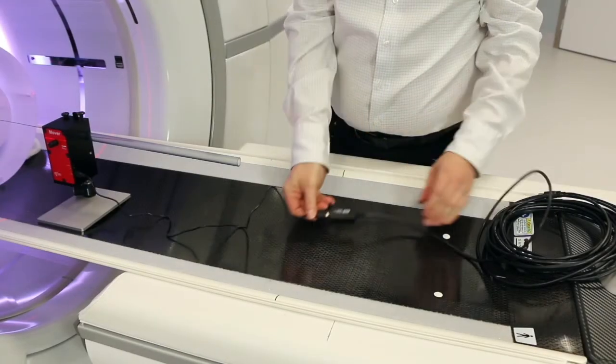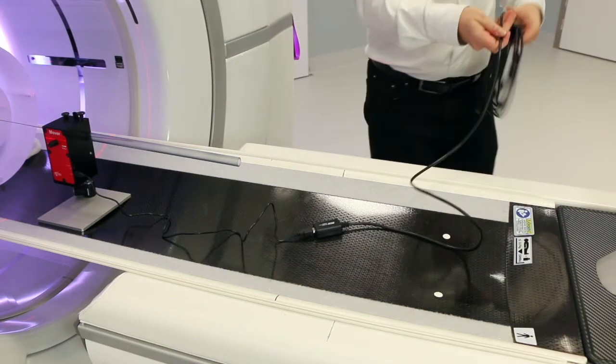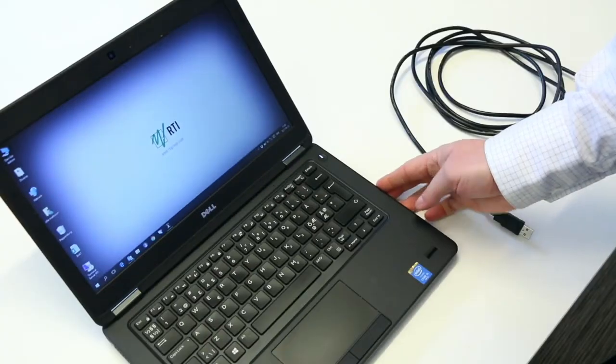Connect the mover to your laptop with the USB cable. If needed use the USB extension cable.